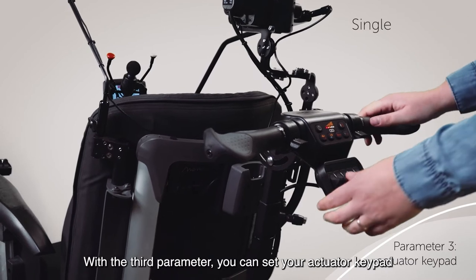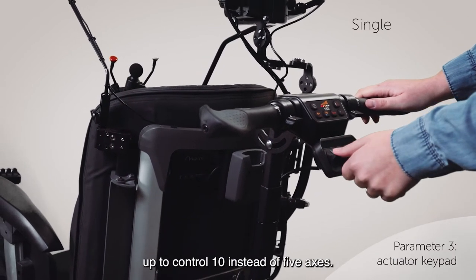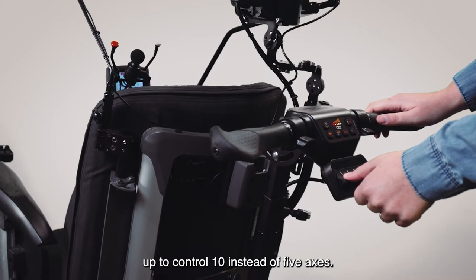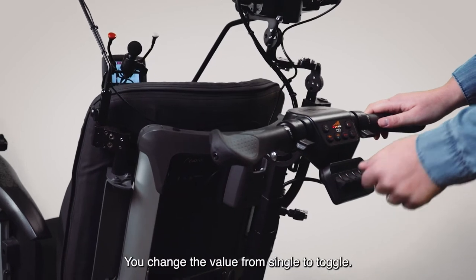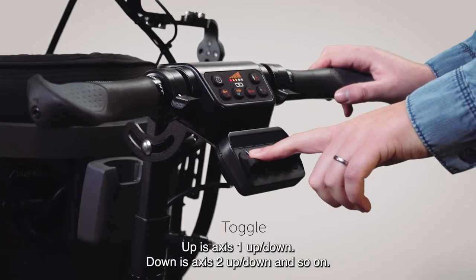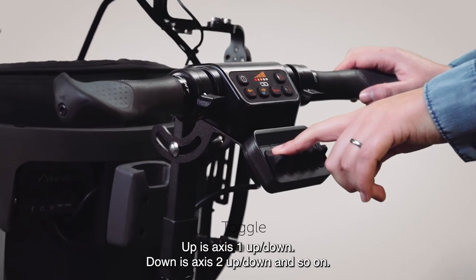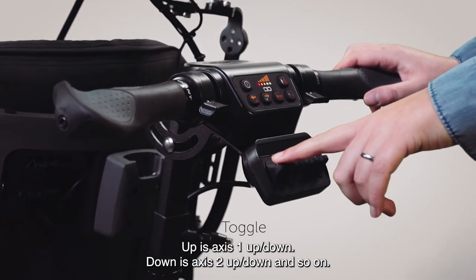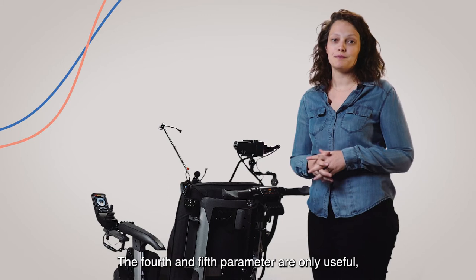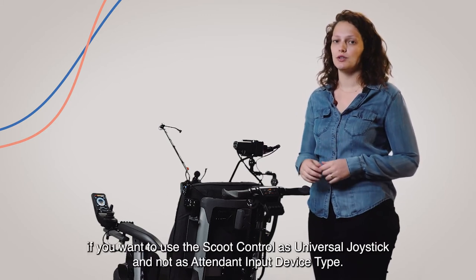With the third parameter you can set your actuator keypad to control 10 instead of 5 axes. You change the value from single to toggle. Up is axis 1, up or down. Down is axis 2, up or down, and so on.